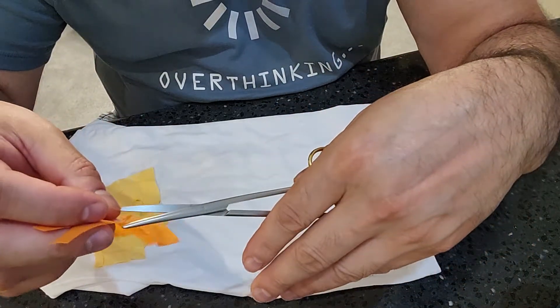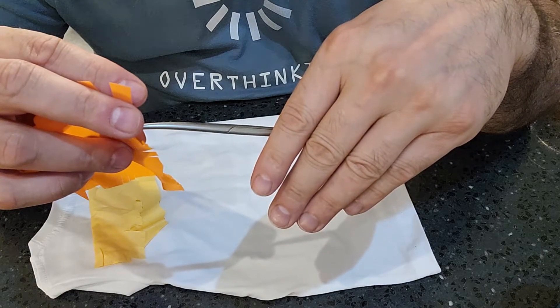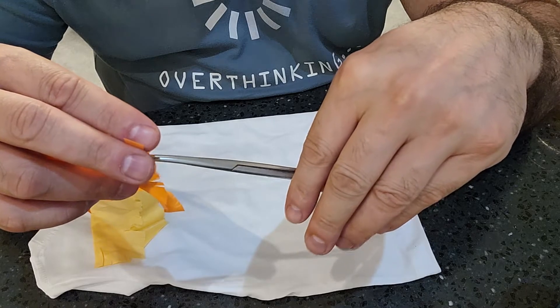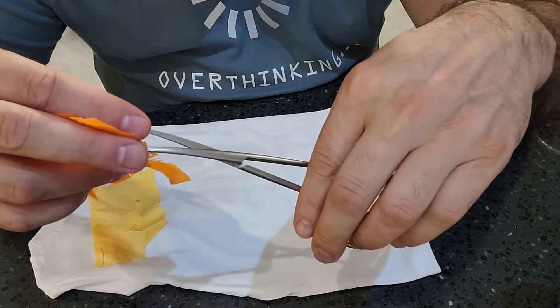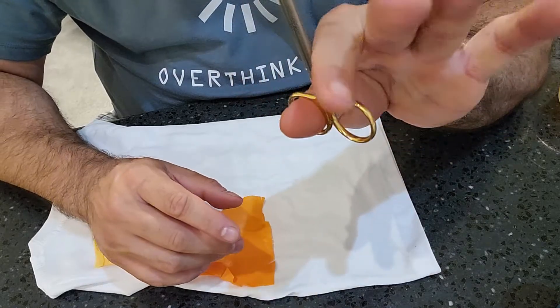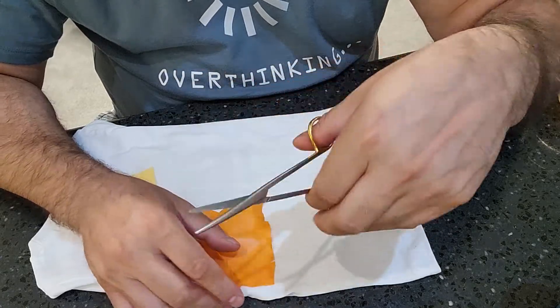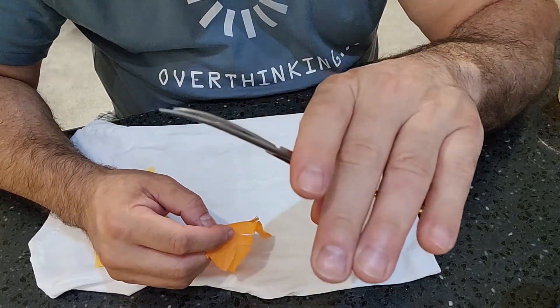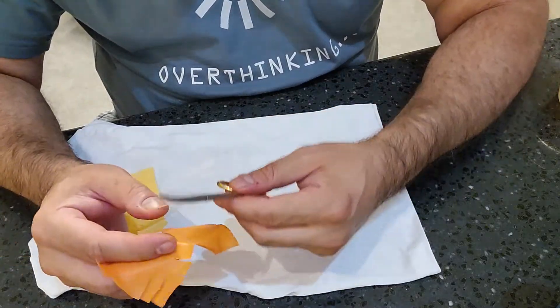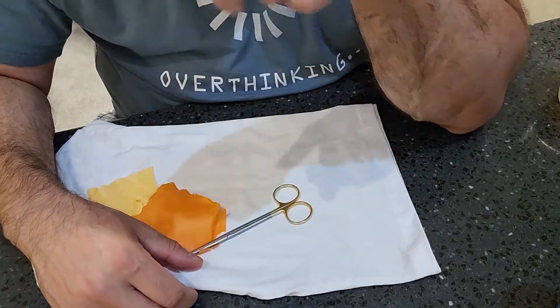With no fingers in the rings, grab the first third of the testing material, cut, and then pull to make sure it doesn't snag. Open the scissor, do it again — cut and pull — and it should produce nice smooth cuts with no snagging. That's a sharp scissor. Palming it and letting just the gravity of the scissor cut through the testing material tells you if you have a nice sharp scissor. All right guys, as always, stay true to yourselves, keep it 100, peace.